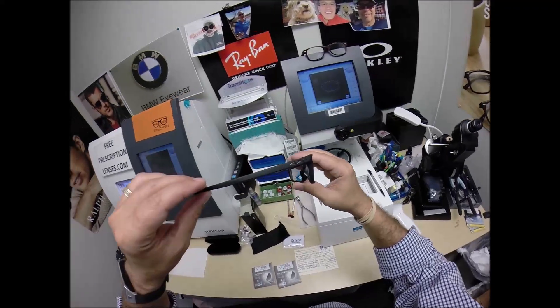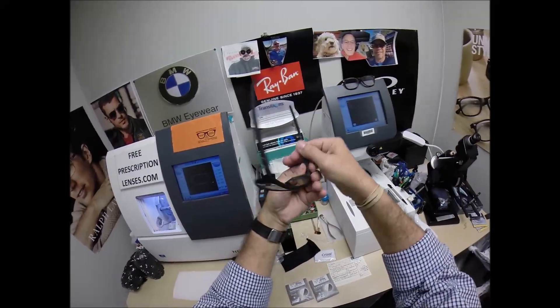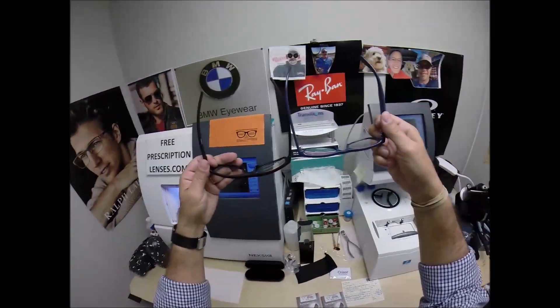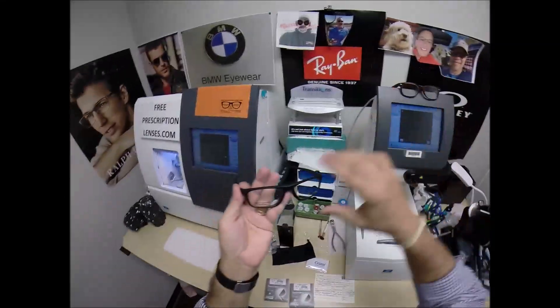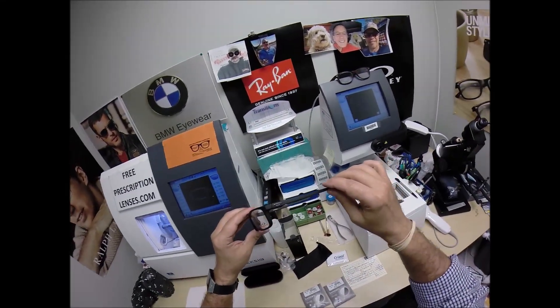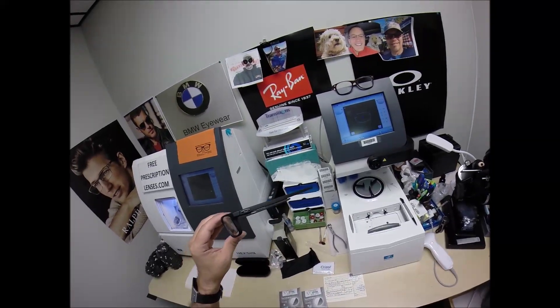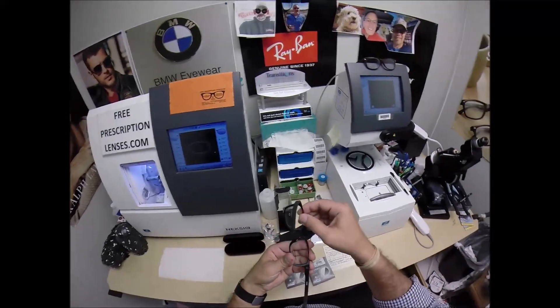Let me pop out the original demo. This one has a little bit more wrap — it's a little sportier than most frames. Most frames are flat across. This one has a little bit of built-in wrap, so it makes for a sportier, unique look. This is the satin black. It comes black with the silver Oakley emblem. There's also a polished tortoise and a smoke gray color, and it only comes in the 55 eye size.